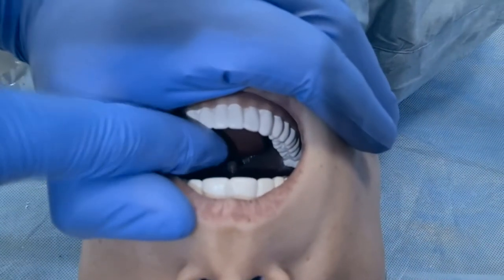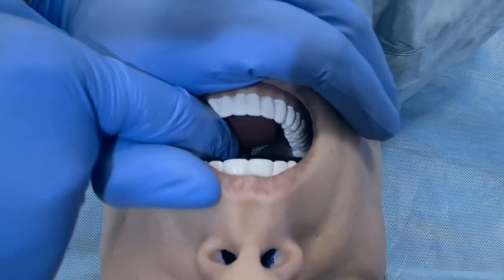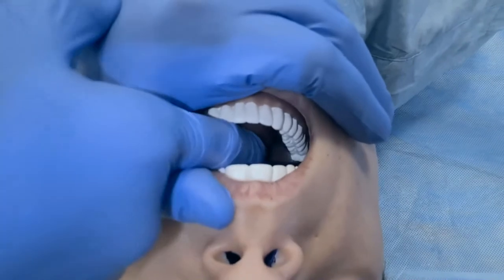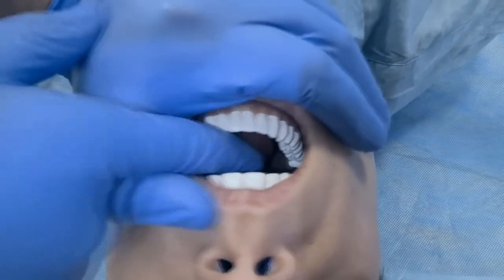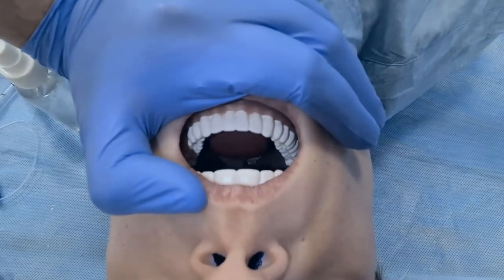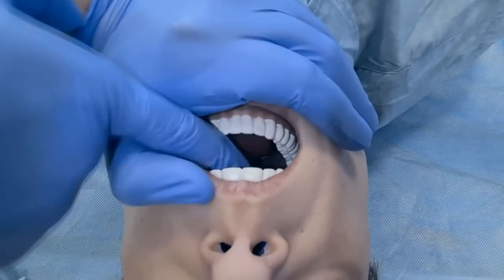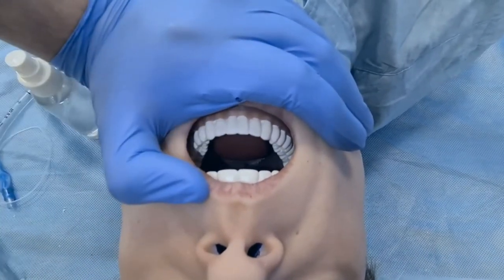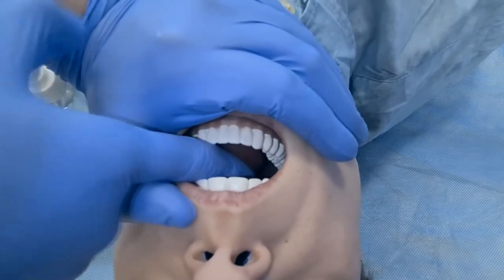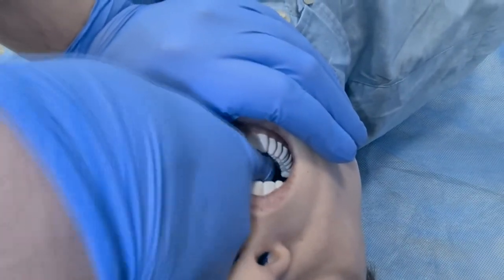Let's have a look at Leonardo's soft tongue. We have two settings for tongue edema: 50% swelling — it's nice and soft — and 100% swelling. When switching from 50 to 100%, give it a few seconds to deflate and then inflate again. It's soft enough that you can try to go around it.